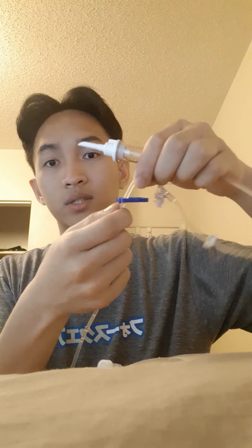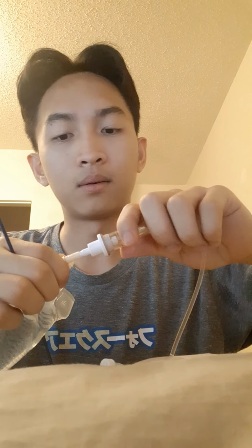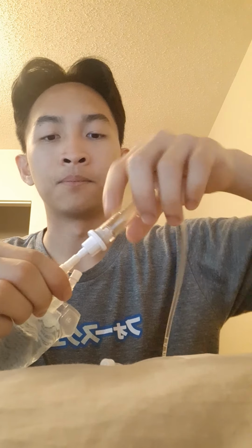So at this point, I'm going to make sure that my IV tubing is all closed, such as this, and the roller is all the way down, just to make sure that it's all closed. Next, I'm going to spike this by doing so. Be careful not to contaminate the end part, rather not to touch the white end part.